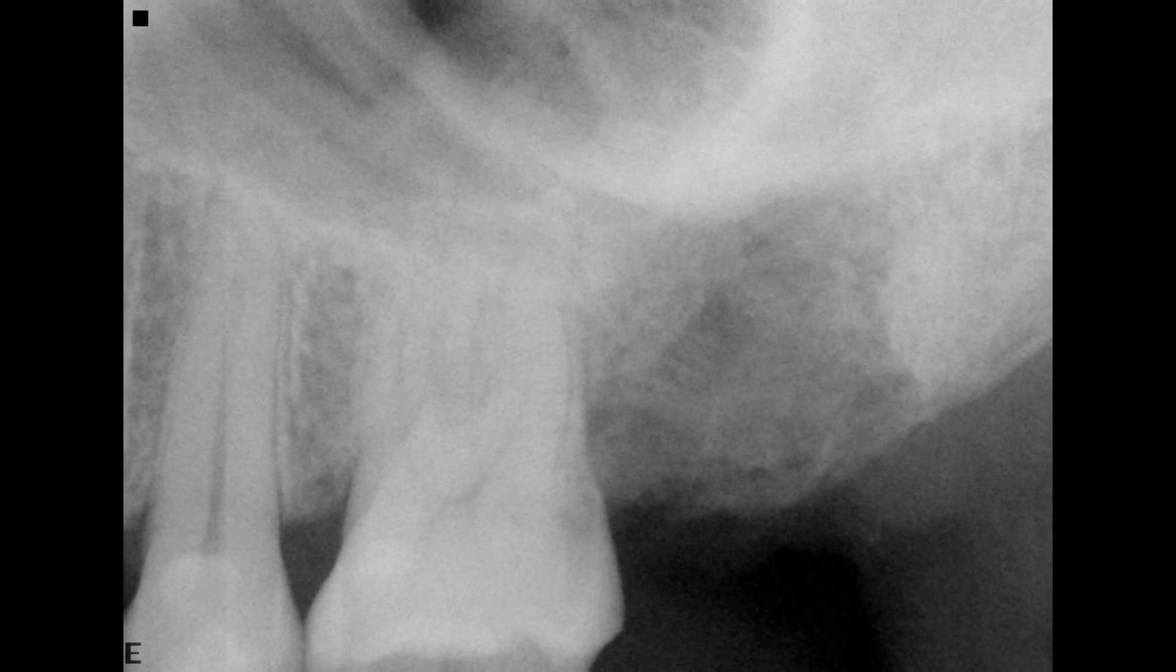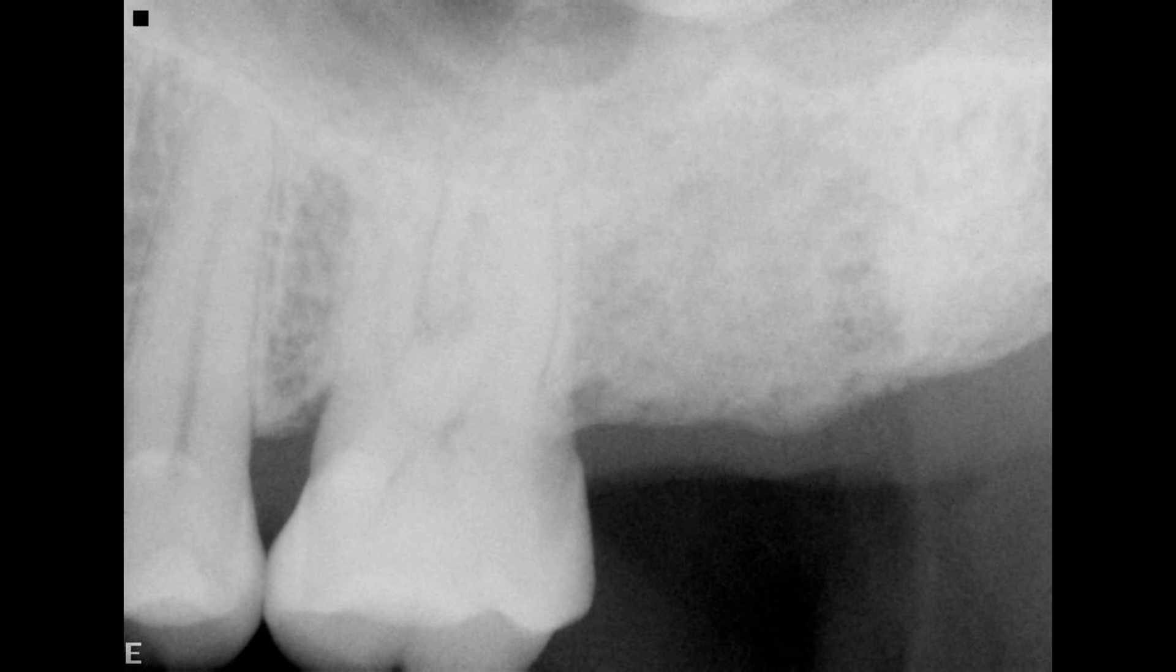Importantly, the Osteogen inside of the Osteogen plugs is a low density graft so it will show radiolucent on the day of placement. As the Osteogen crystals are resorbed and replaced by human bone, the site will become radio-opaque. This provides a great indicator of sufficient bone formation for implant placement.